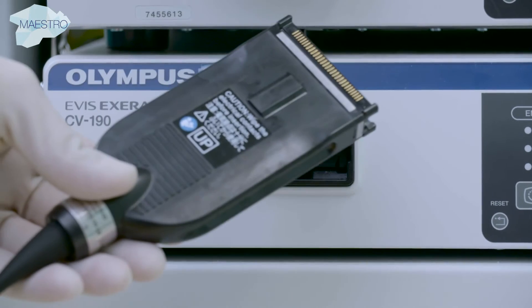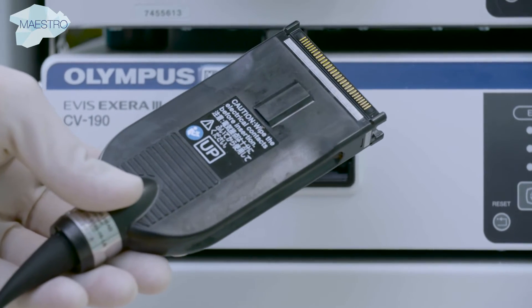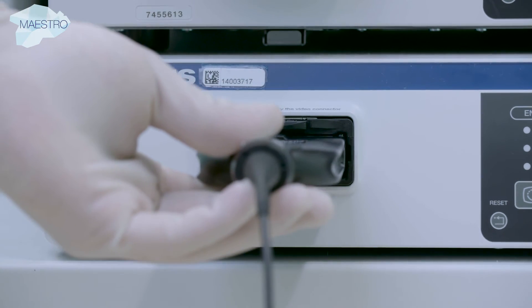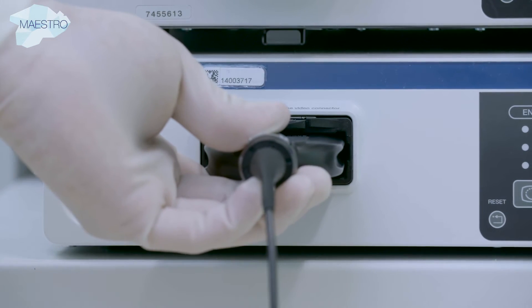Make sure the imaging connector is dry and connected to the video processor. As soon as it's connected, you can turn on the processor.